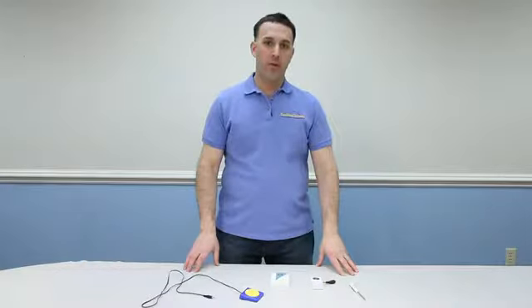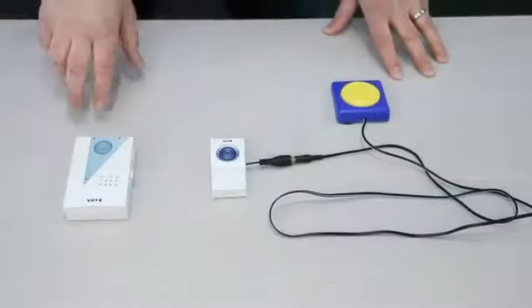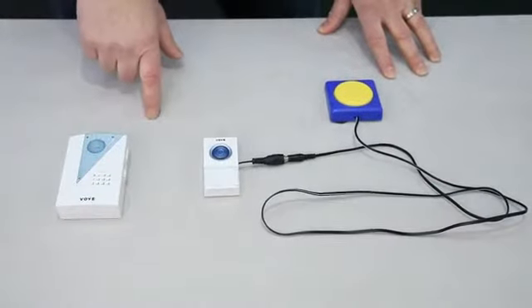I'm with Enabling Devices Tech Support. Today I'd like to show you one of our products, the Attendant Call Chime, item 1499. So let's get started. The attendant call chime consists of two parts.